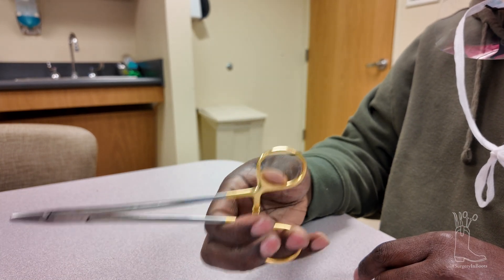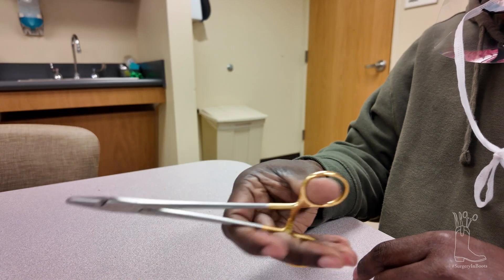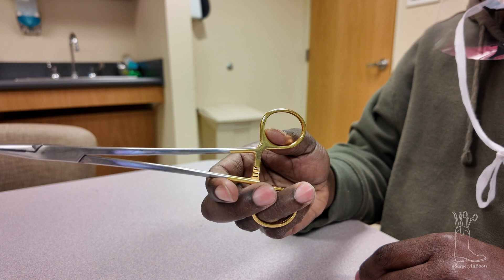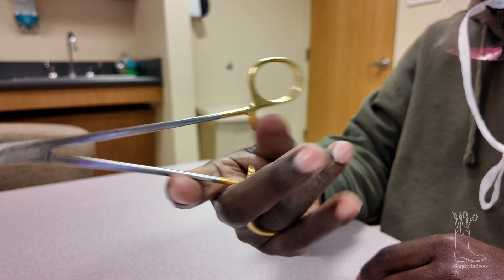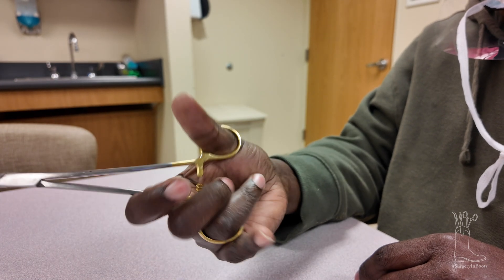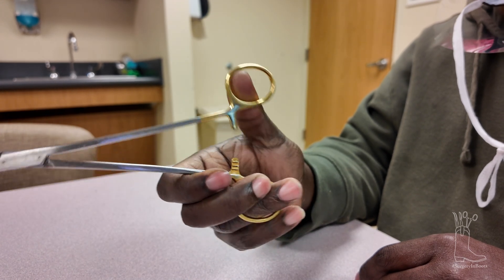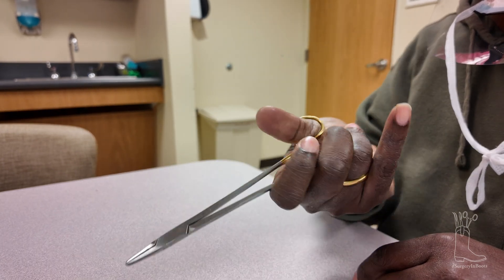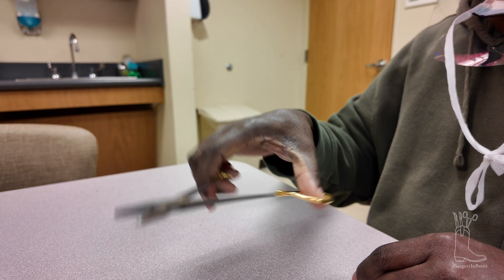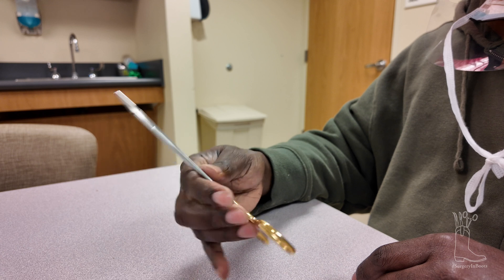It is designed technically to have this finger in it a little bit and this thumb right here. Now the interesting part is sometimes it slips — it's not a big deal — but if I got to put it down real quick I can do that. Versus if I have my fingers in here like this and I got to unclamp something, I kind of got to do a weird thing to get it out. This gives you better range of motion so no matter where you're sewing you can do this, versus if you got your fingers in there you kind of can't. Here you can go everywhere and turn it easy.